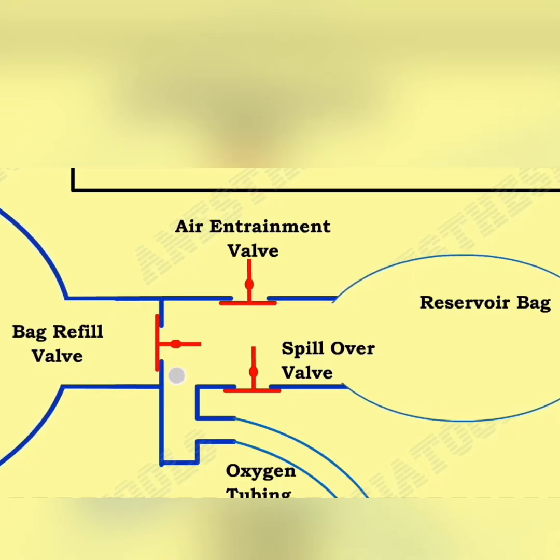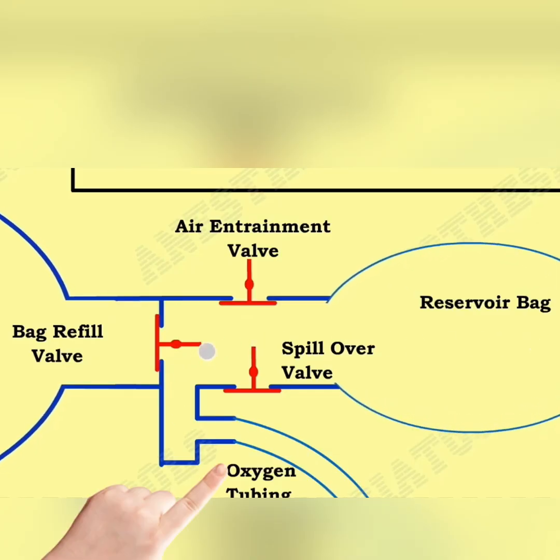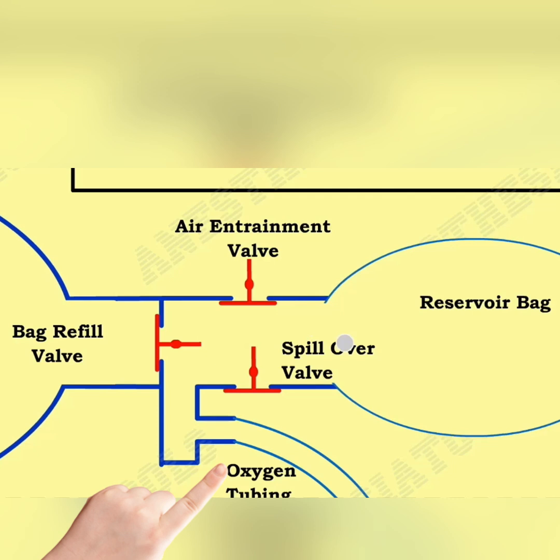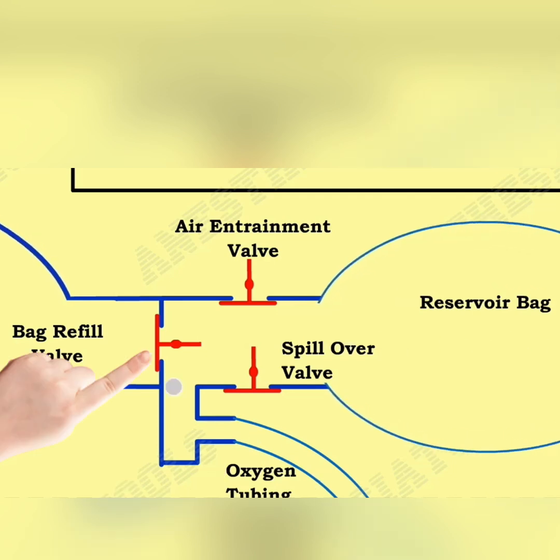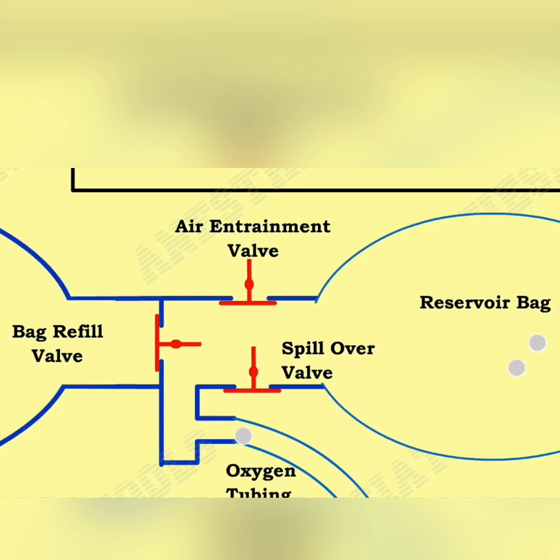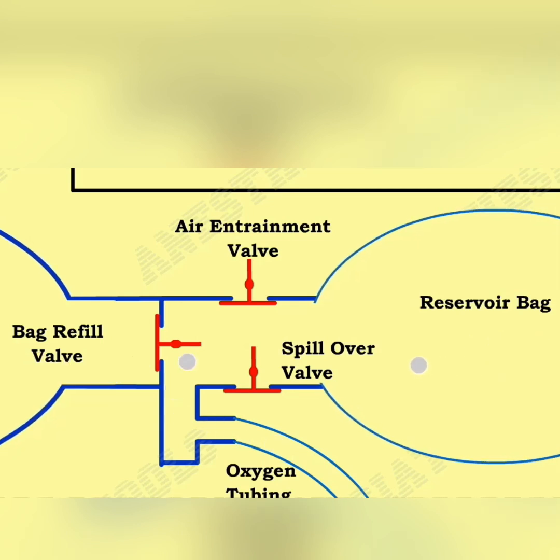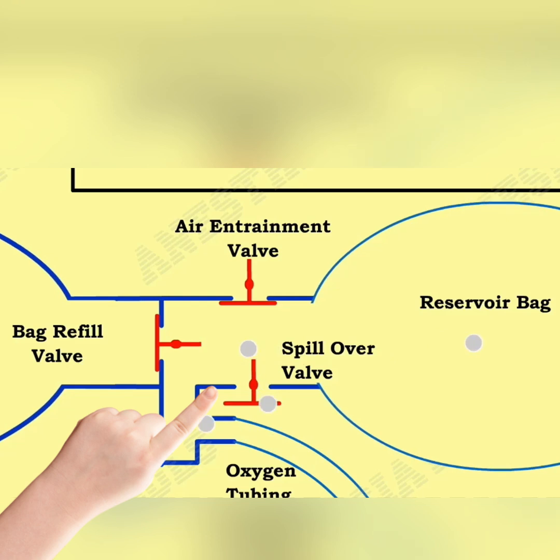Here you can see the oxygen tubing allowing oxygen into the reservoir bag, because at this point the bag refill valve is closed. The reservoir bag keeps expanding, and after a point the spillover valve gives way and the excess oxygen is vented out.